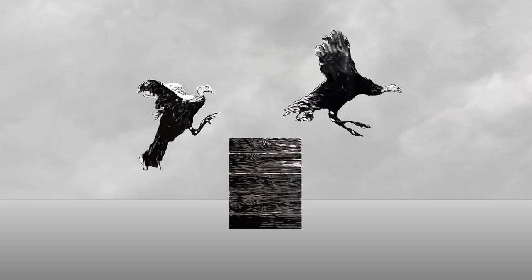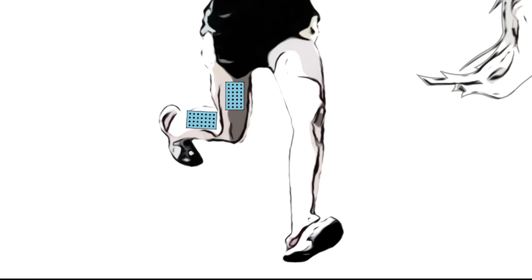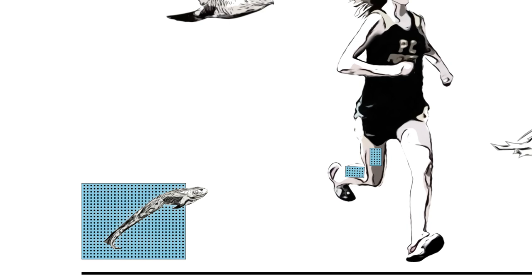The research team plans to extend the new muscle tracking system to its use across scales, from small animals such as frogs up to the largest of organisms, to enable new scientific explorations and an improved understanding of muscle function and movement.